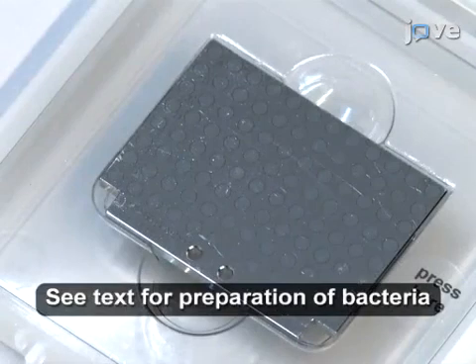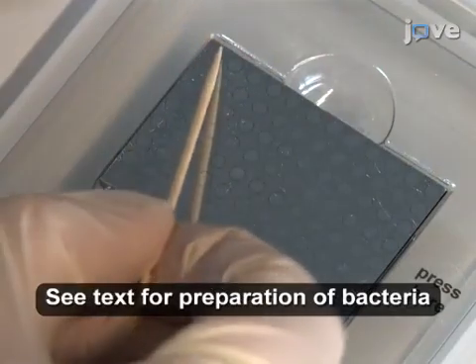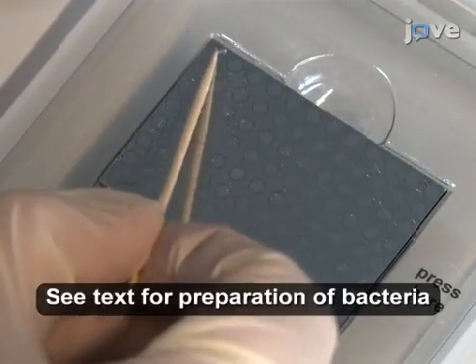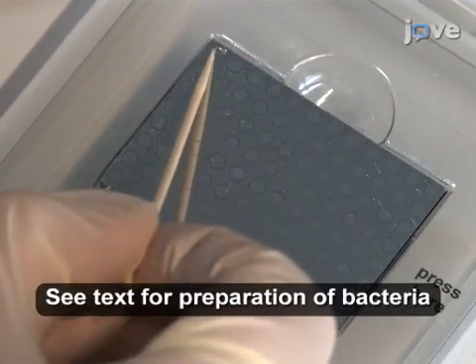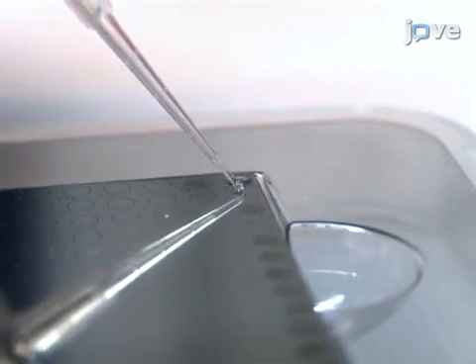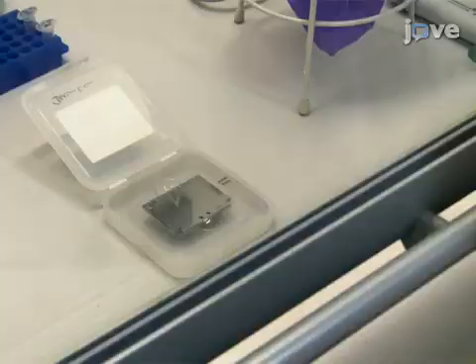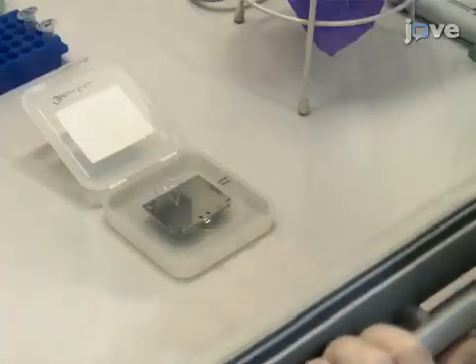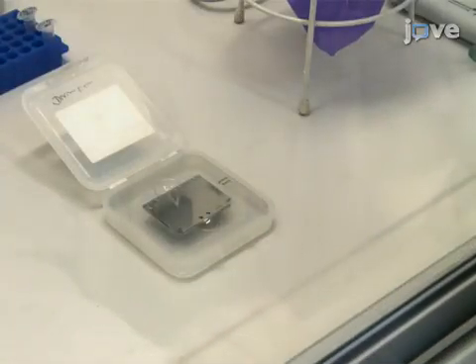Use a wooden toothpick to transfer a single bacterial colony to a well of a 96-well steel target. Spot one microliter of 70% formic acid on top of the air-dried organism on the steel target and leave to dry for approximately two to three minutes.